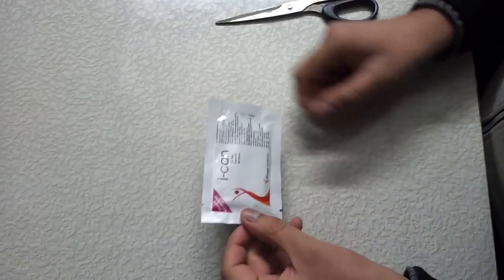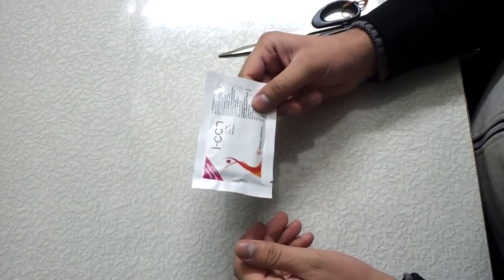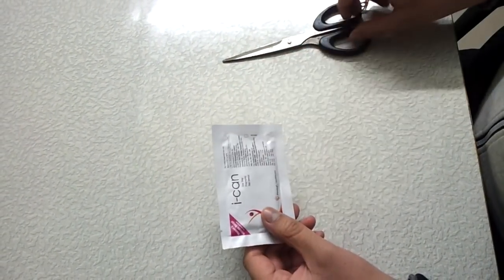Hello everyone, in this video I will show you how to test for pregnancy at home using this iCan kit. This is available for Rs.50 in India. So let's do it.